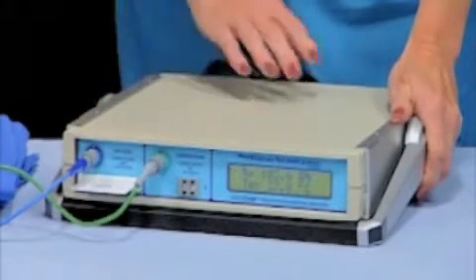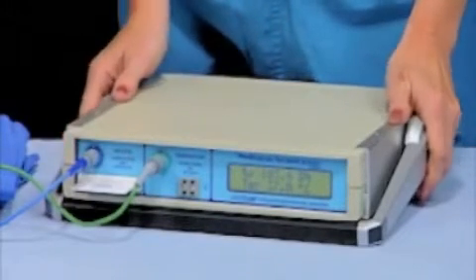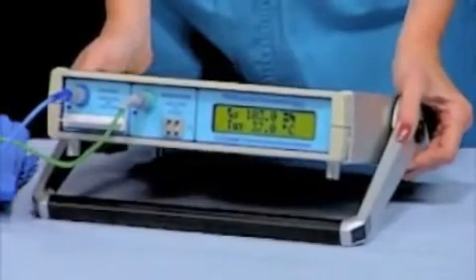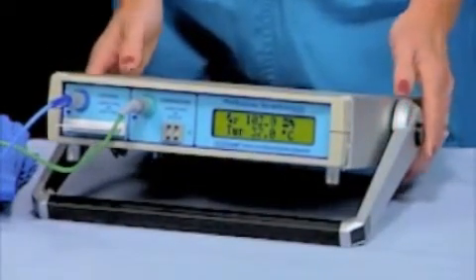The monitor is flat and compact and can be set up at the bedside at an angle for better visibility. Depressing the handle on either side allows for transport or adjustment of the monitor position.